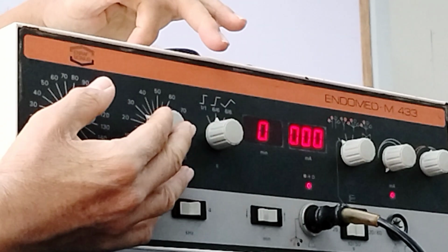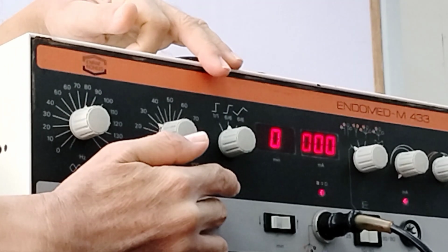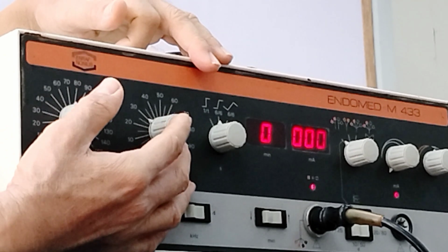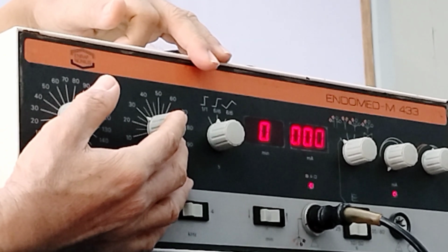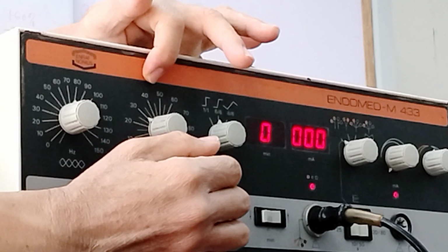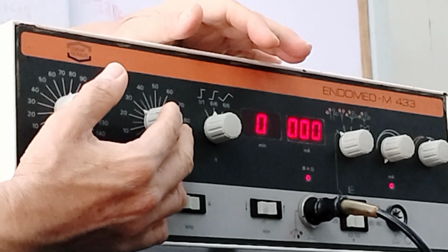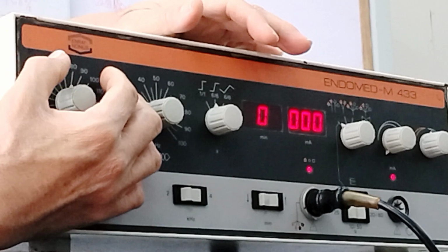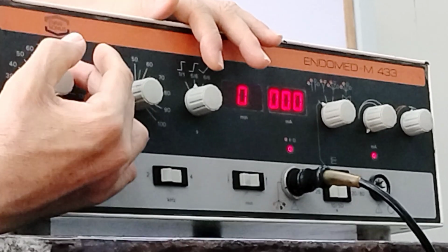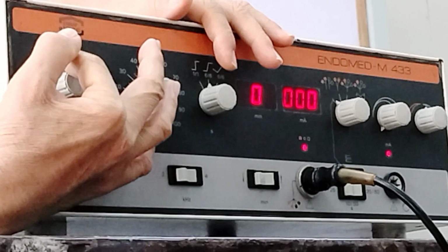You can expect that the other medium frequency current, for example if you place this to 4,000 hertz, would vary from 4,080 hertz up to 4,110 hertz, if it is 80 and 30.